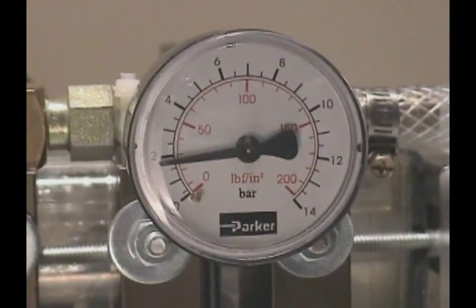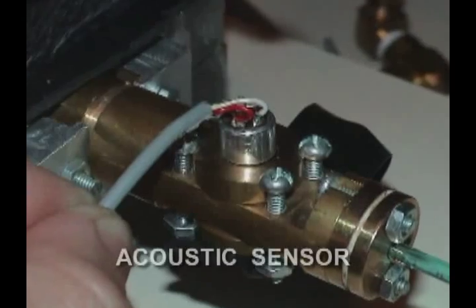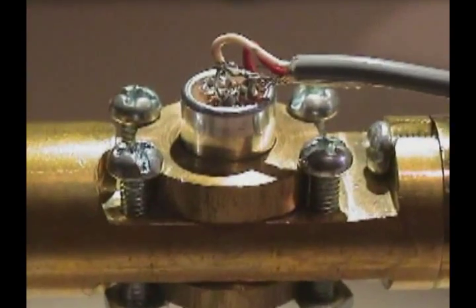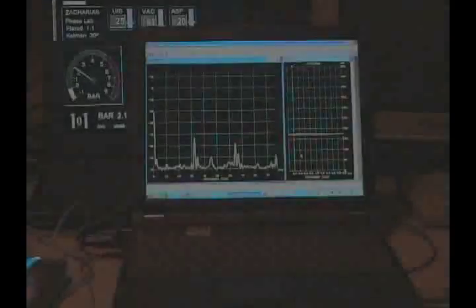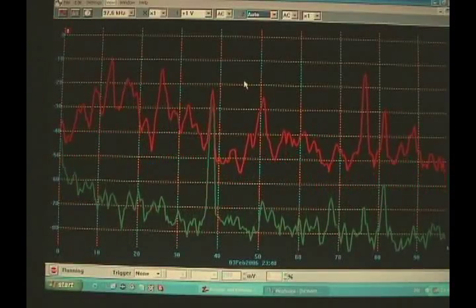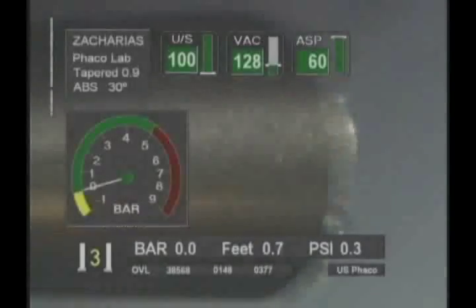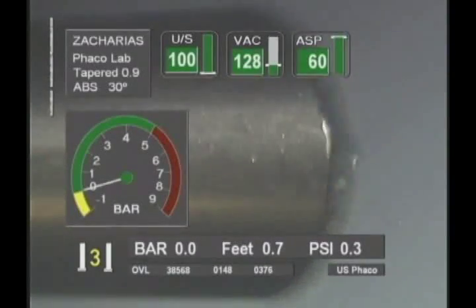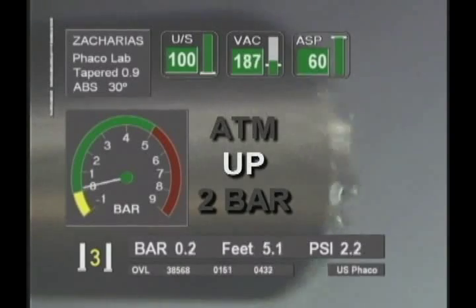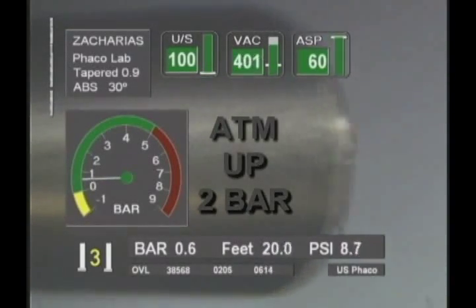Having clearly identified cavitation, the cavitation phenomenon was now monitored at different pressure levels. Also, the hissing noise characteristic of the phaco handpiece operation — supposedly related to cavitation — was recorded at different pressure levels and spectrum analyzed. To our fascination, we could observe that increasing pressure above atmospheric significantly inhibited cavitation activity.